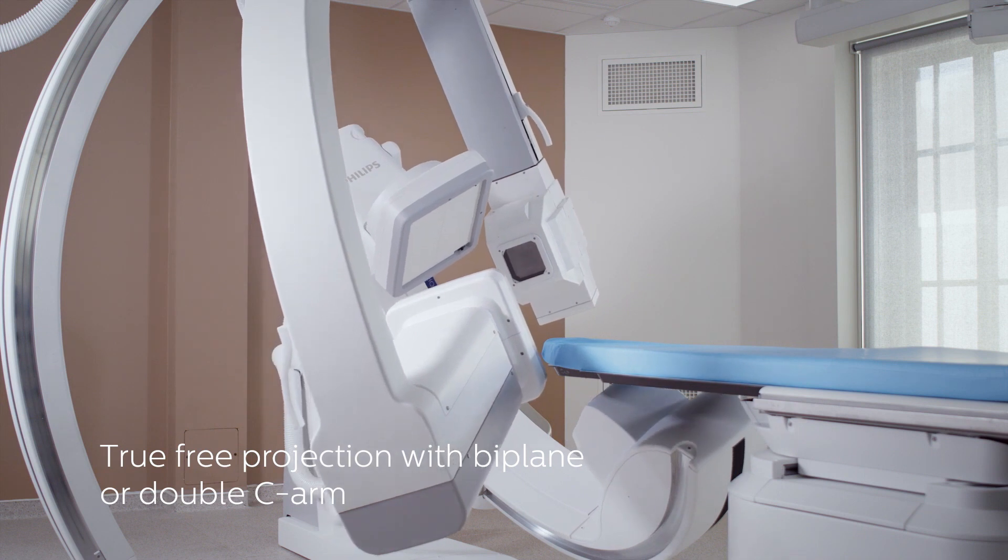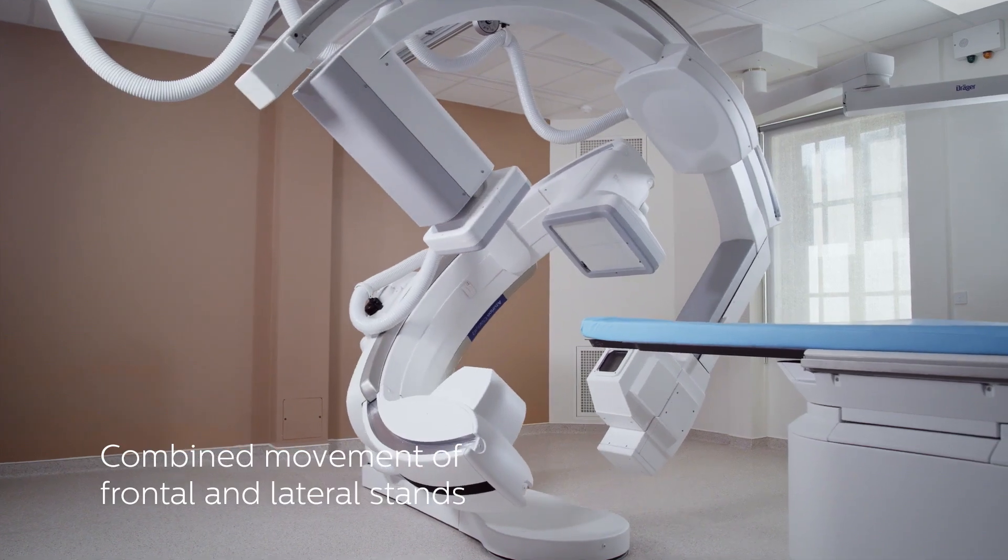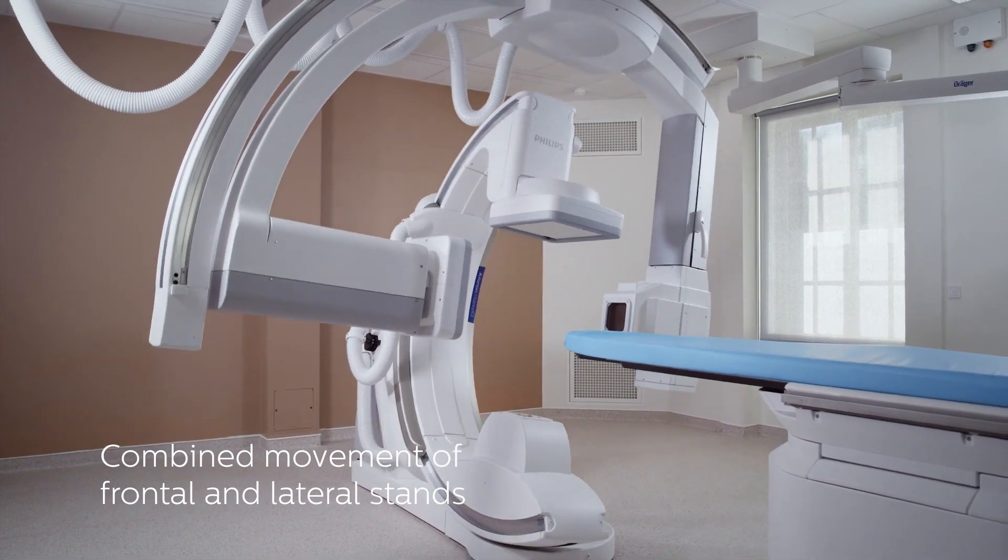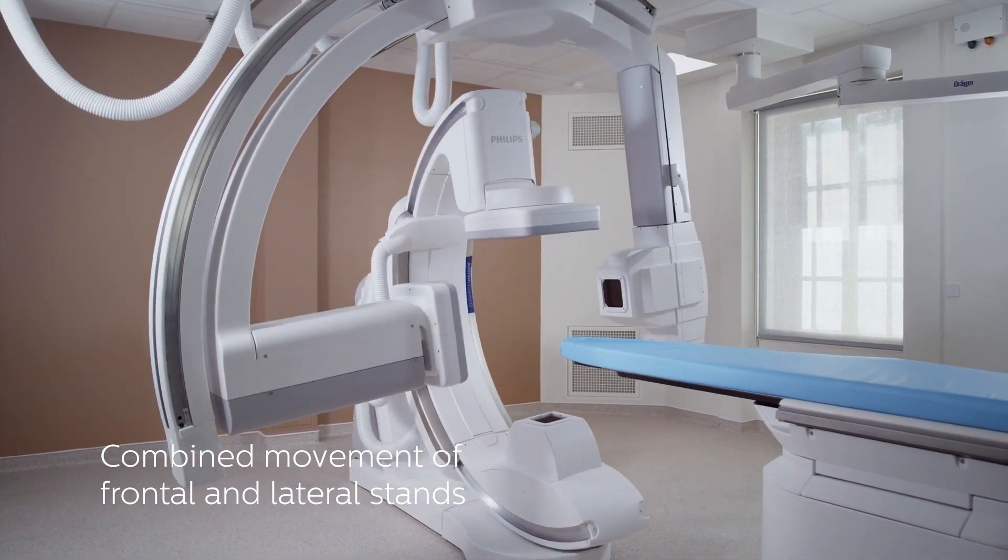Biplane cath lab systems acquire 3D images much faster than single plane cath labs. That's because they capture image data from detectors on two axes instead of one.